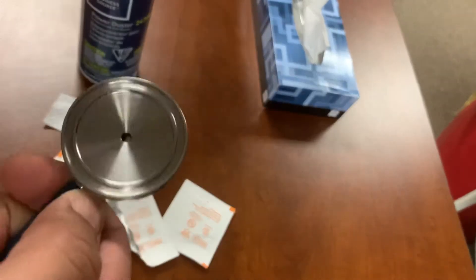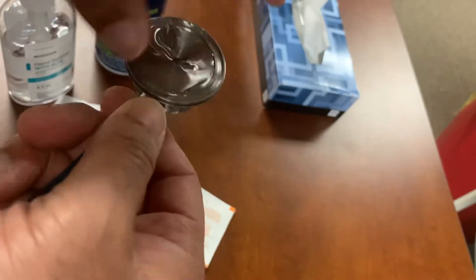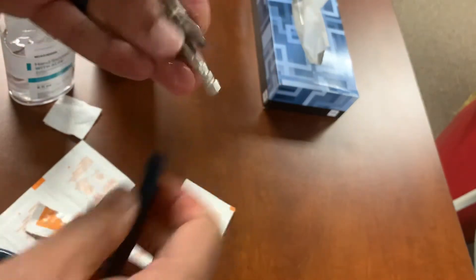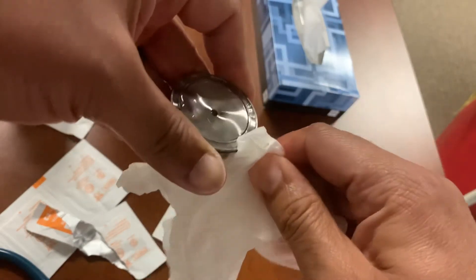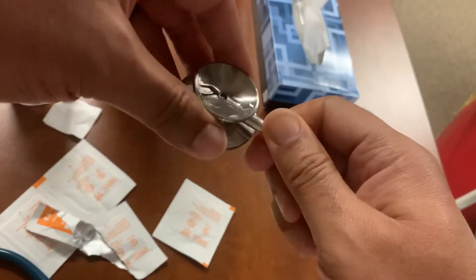So what I did — it was stuck, stuck, stuck. I started shoving hand sanitizer in the holes, rubbed it in, and kept messing with it, but I couldn't get a good grip because the rubber was turning. I found out you can also pull the whole thing off — it takes a second. Pull it off, then I took some gloves, because this thing is really sharp right here, and you wrap it around really good, and I kept going at it and going at it, and finally it was free. I was able to freely turn it back and forth — didn't have to buy a new stethoscope. I love this stethoscope. It was given to me by a friend.